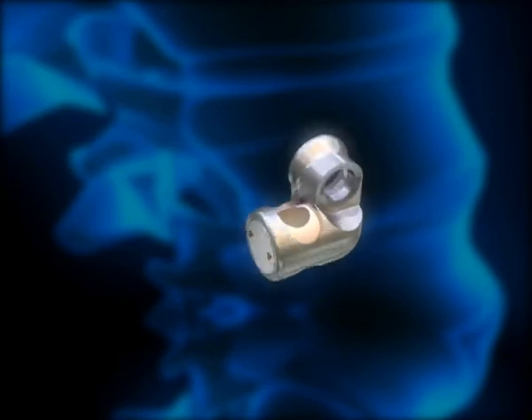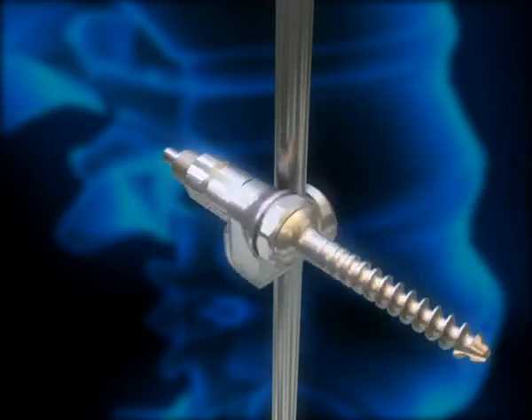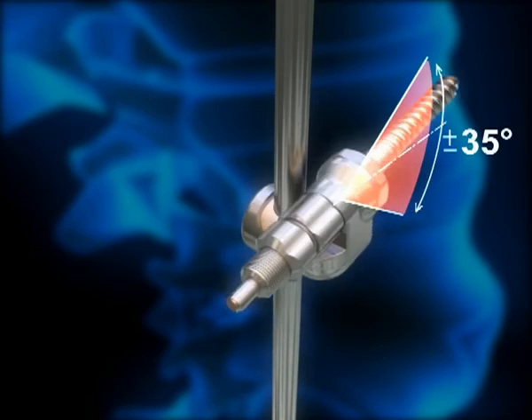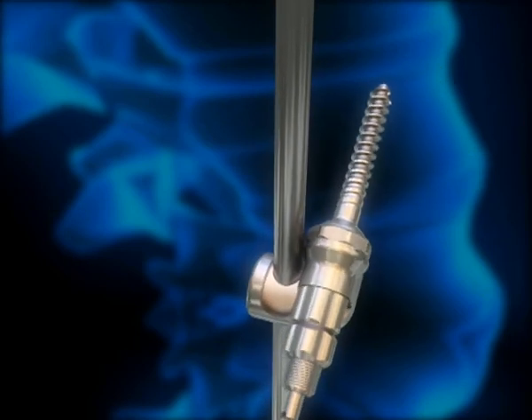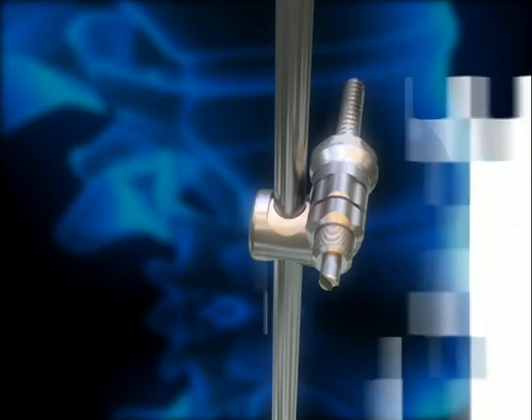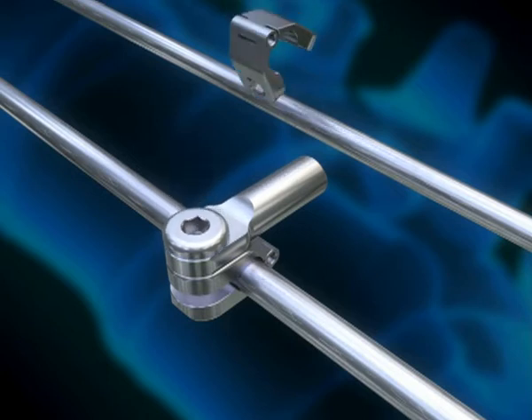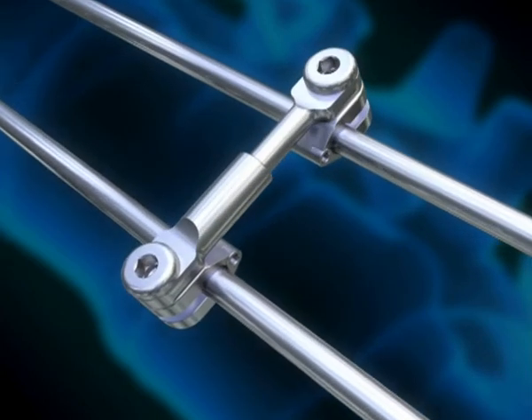The mobile connectors have a polyethylene core and link the screw to the rods. The mobile connectors can rotate around the rod axis and slide on the rod. In addition, angular movements of plus or minus 35 degrees are possible. The polyaxial mobility of the screw is always maintained. To increase the correction power and rotational stability, the two rods are finally connected with a crosslink. The dynamic crosslinks prevent rod rotation but still allow micro-motion.